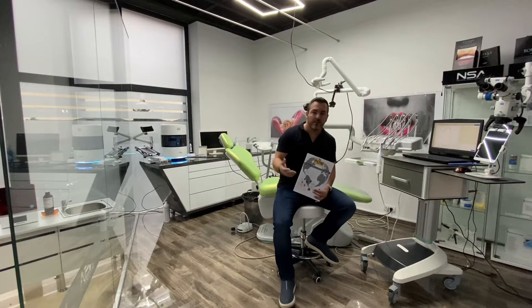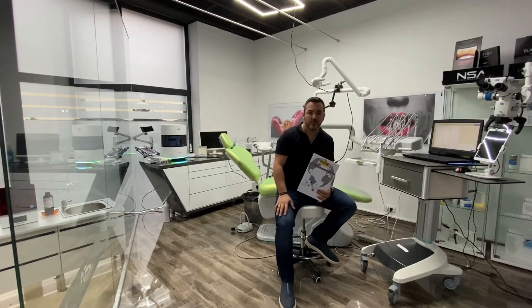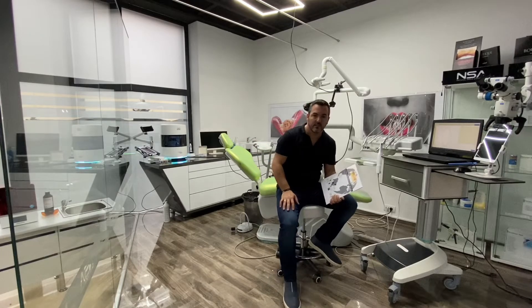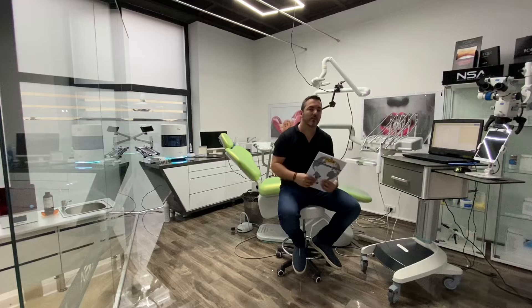If you are a beginner and you start with digital dentistry and you are afraid to switch from analog to digital, I can help you with some tips and tricks. As you can see all around me, I have my equipment that are specially made for chairside dentistry. Today we are going to talk about clinical aspects — from the clinical point of view, not from the laboratory point of view — what equipment we really need to have in our dental office.